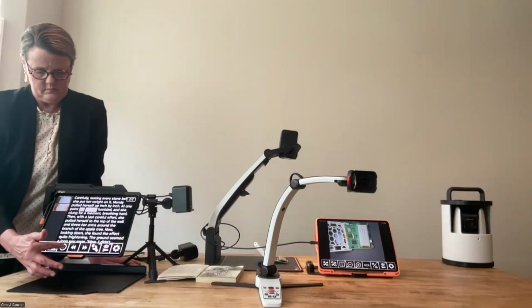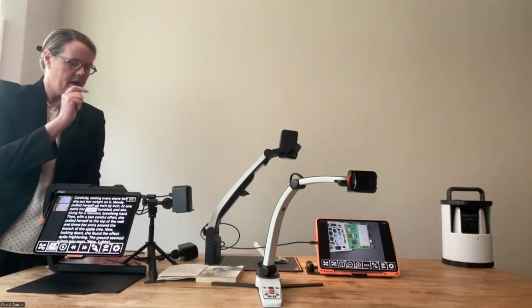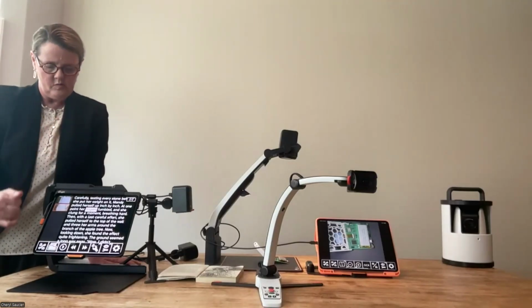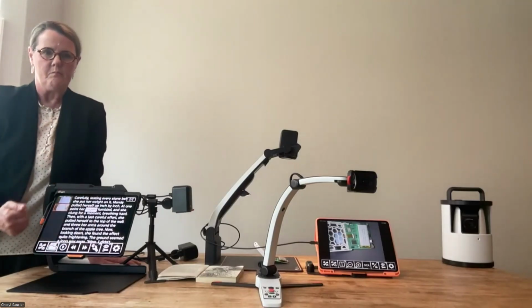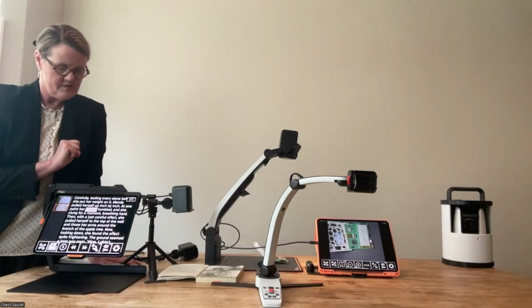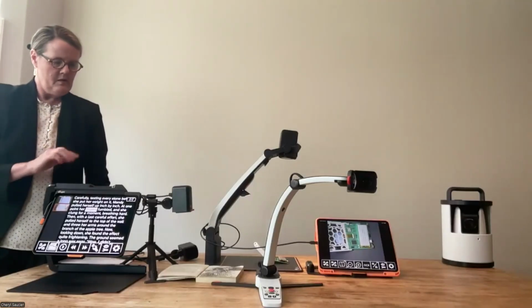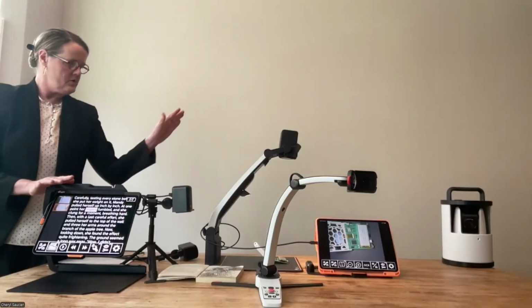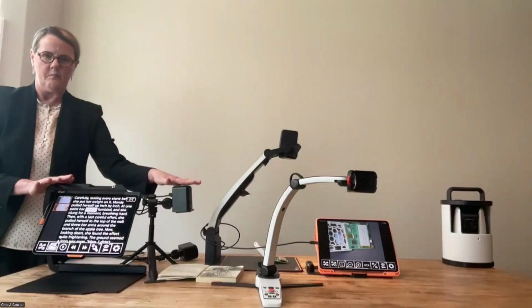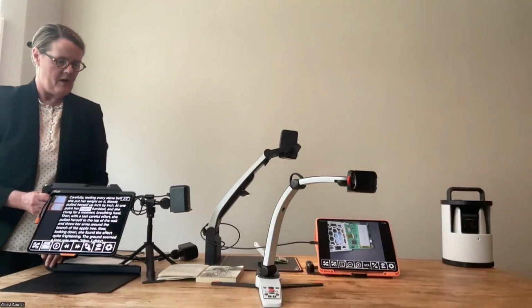So that just gives you an idea of how fast that OCR is and the AI integration. And again, we have webinars that go over the Magnilink viewer in much more depth, but I just wanted to give you an idea of those two things because I mentioned those in our earlier presentation. So iTab with or without an external camera, or you can use it with a mini or one of our other cameras. The next one I want to move on to is our Magnilink S.